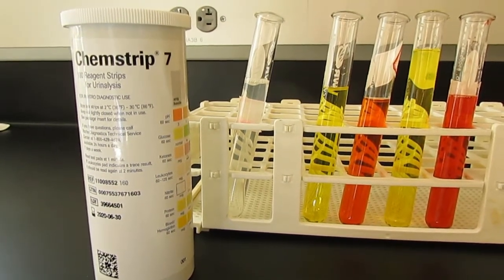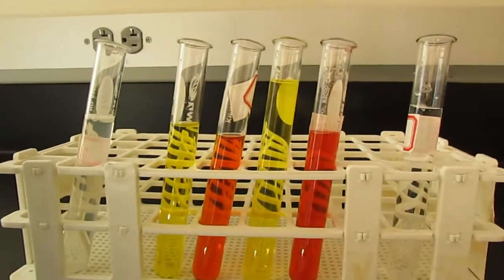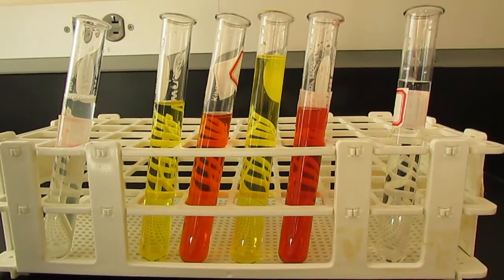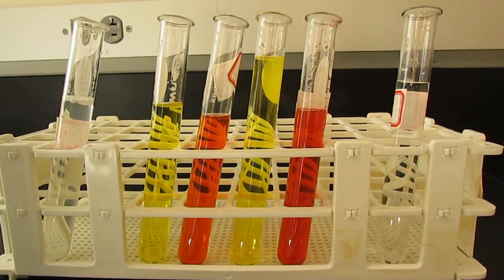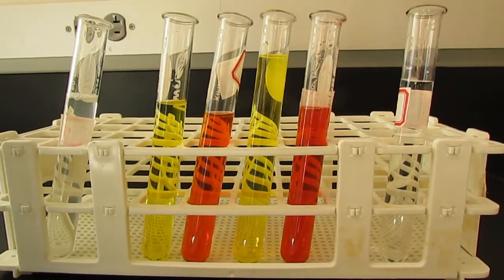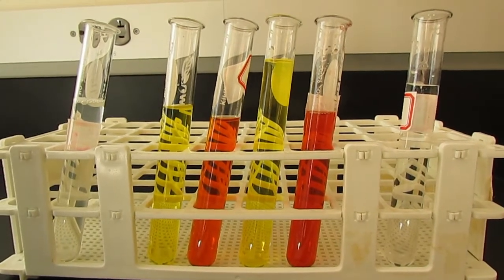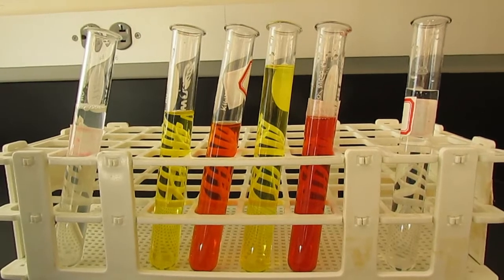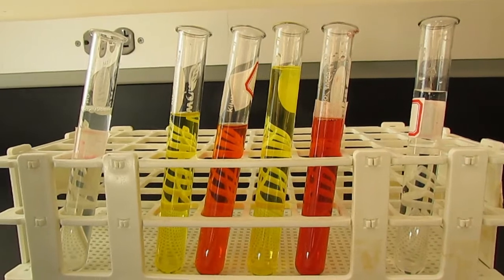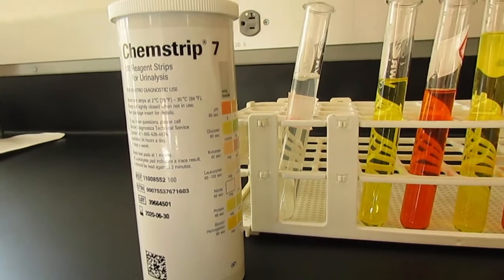In today's lab, I'm going to demonstrate for you a urinalysis test. What I have is 6 vials of simulated urine, and I'm using simulated urine for biohazard purposes. All of these quote-unquote urine samples contain components that would be found in different individuals with different conditions. One of them is presumably healthy, and the other 5 have some kind of condition which can be detected by this urinalysis test. What we're going to use is first a chem strip.